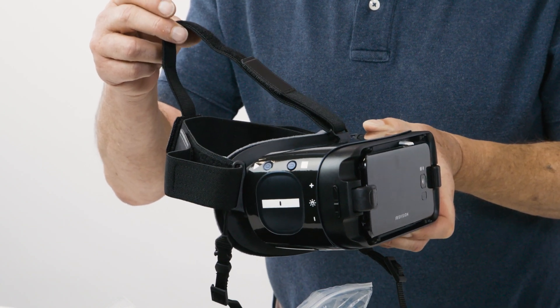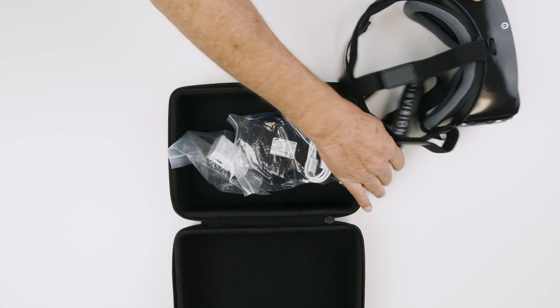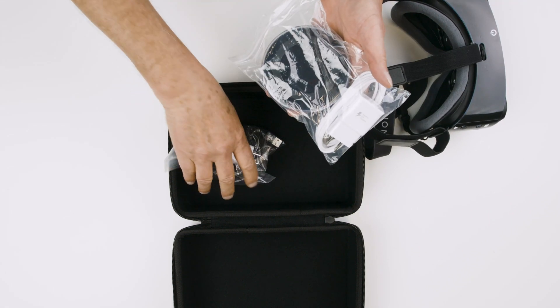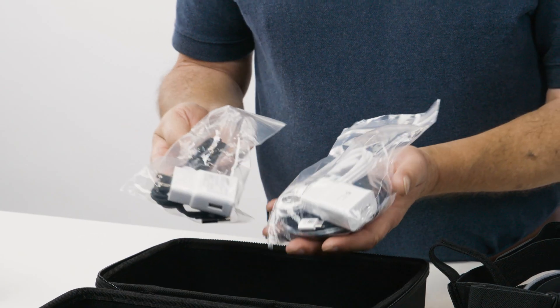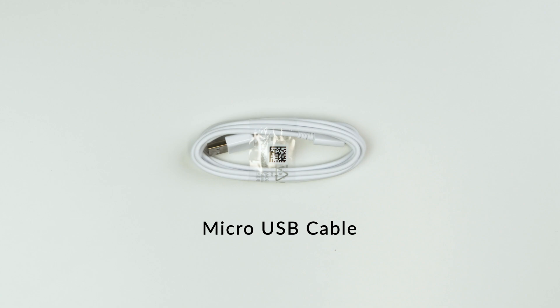This can be found in the video 'Adjusting the Straps and Lanyard.' Inside the plastic is the charging pad, micro USB cord, Type-C converter, power plug, and magnetic cable.